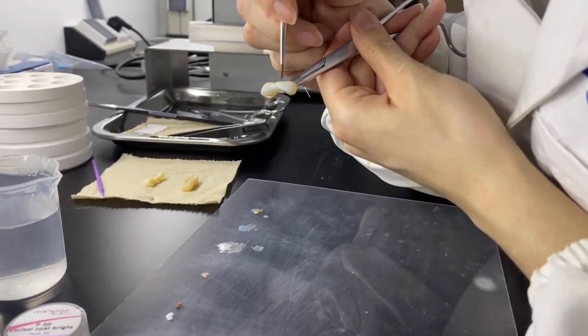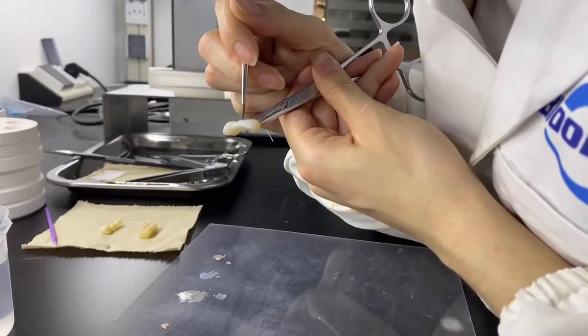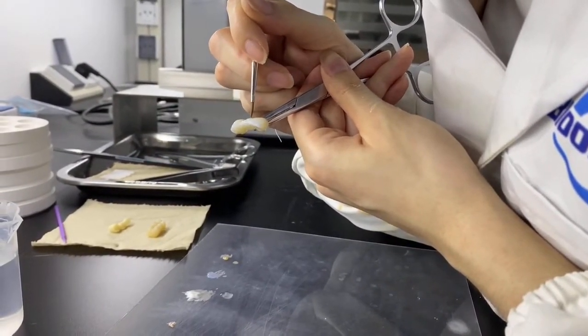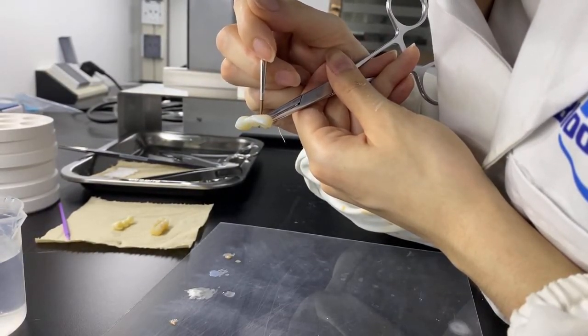To glaze some red brown stain to make shadow between two adjacent crowns of this 3D Pro zirconia bridge case, because excellent aesthetics is required.